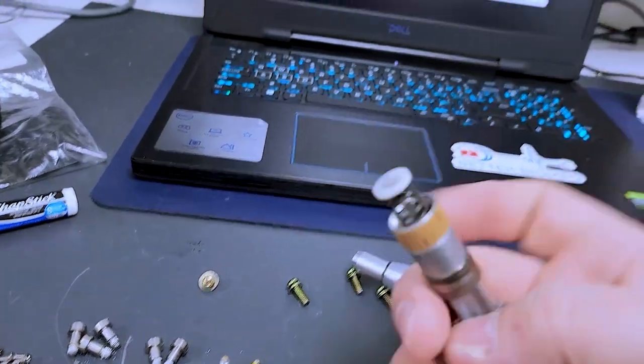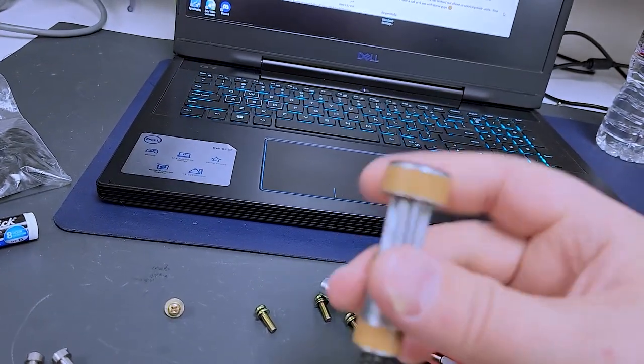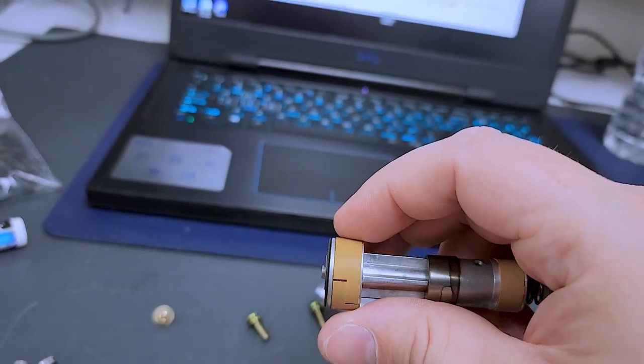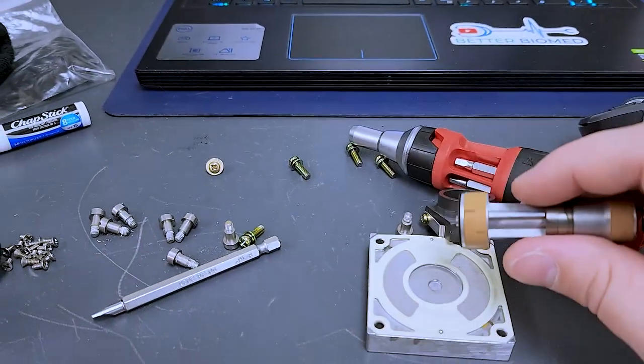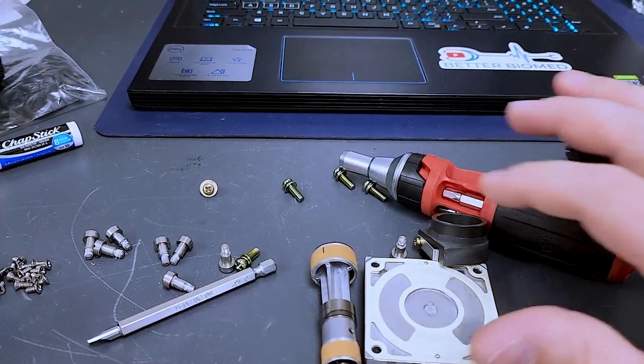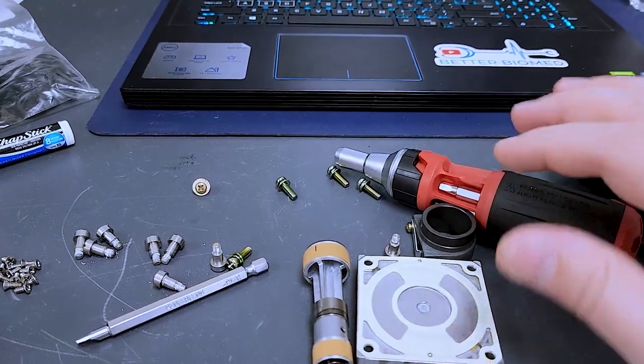So, I checked the ring for scoring. There's no scoring. These guys right here, the bearing surfaces are nice and smooth. Beautiful. So, this guy's ready to go back together. And we'll test it out now that it can build pressure because this guy here is now sitting much more flat.